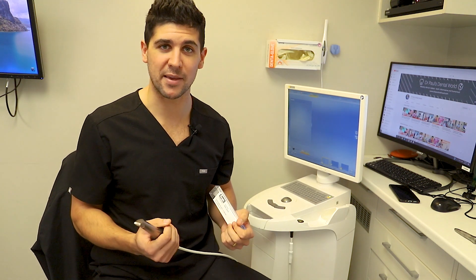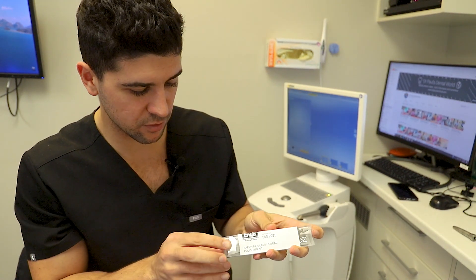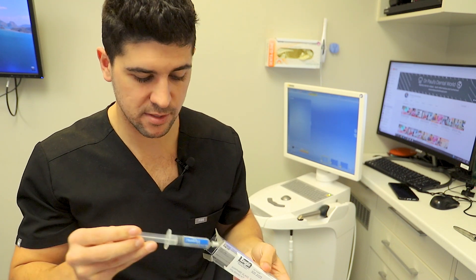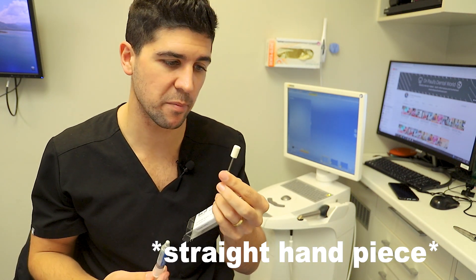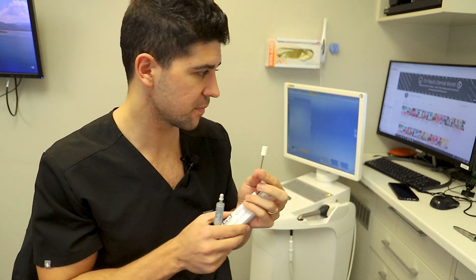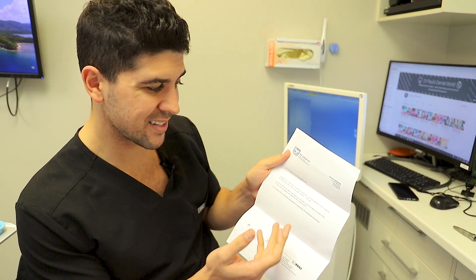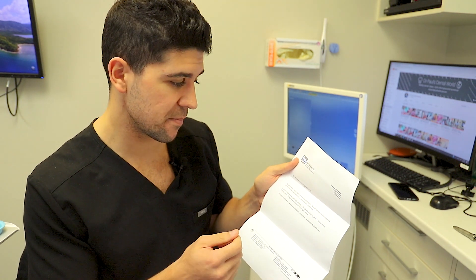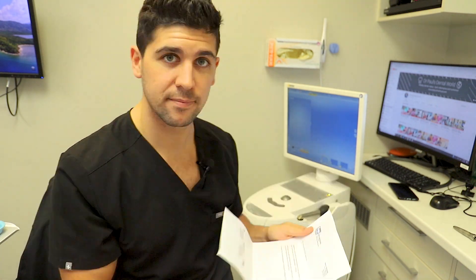Watch along — I hope you get something out of it and it helps you scan better. So this is the kit and this is what it comes with. In this little container is the actual polishing paste, and then you've also got this brush which attaches to your slow speed handpiece that does the polishing. As per the instructions, simply apply the diamond compound to the outer diameter of the cylindrical felt bob, run the rotary hand tool at approximately 15,000 RPM, do it for about a minute or two in one direction, then switch and do a minute or two in the other direction.